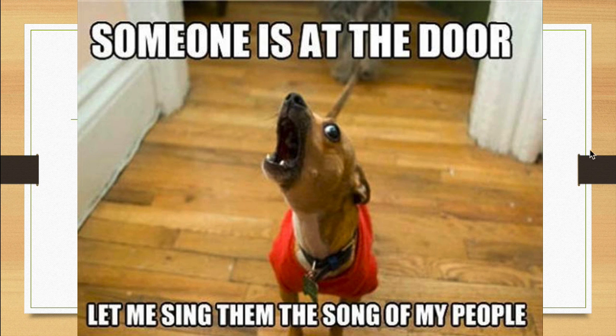So this slide here was inspired by my dog, who, at the sound of even a whisper at the door, will sing the song of her people and bark like crazy. So whenever you're setting up suction, make sure before you tuck it away that you've demonstrated to yourself that you can hear the sound, that beautiful sound of suction.